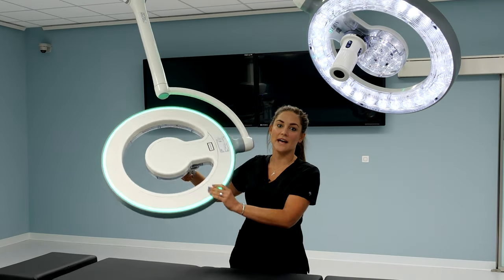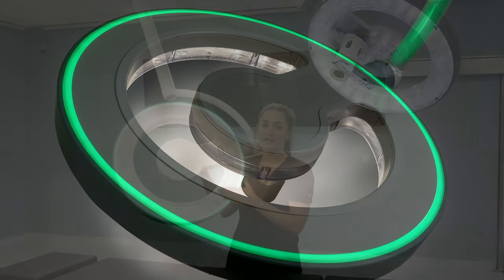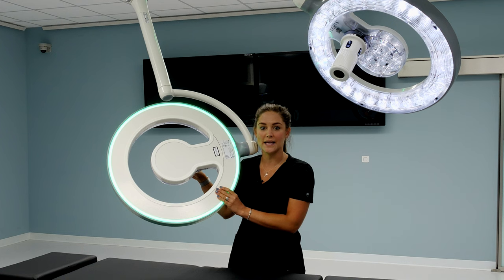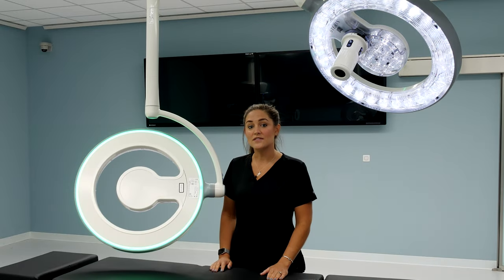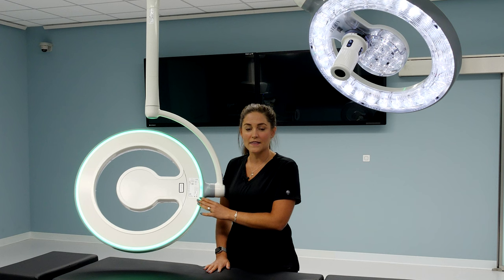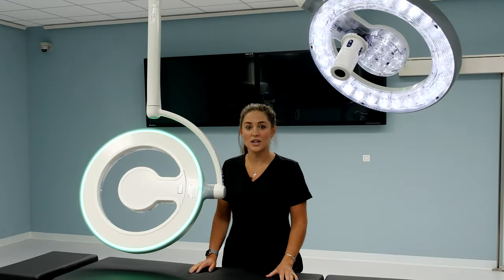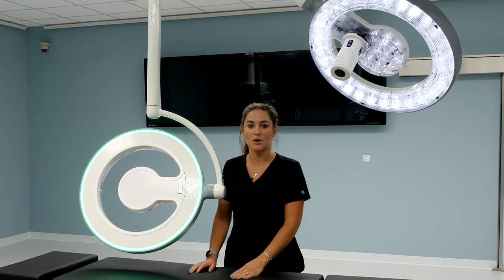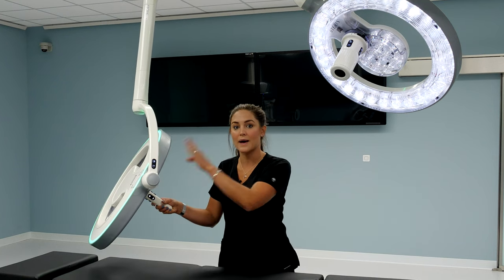The first thing you'll notice on the light head is the open concept. This was specifically designed to help promote laminar airflow as well as dissipate heat and surgical smoke over the sterile field. The next feature you'll notice is the green accent light on the back of each light head. This is primarily used during minimally invasive cases. There are two different ways to control this feature. The first is on the wall control where you can enable or disable from the settings tab. The second is from each independent light head.